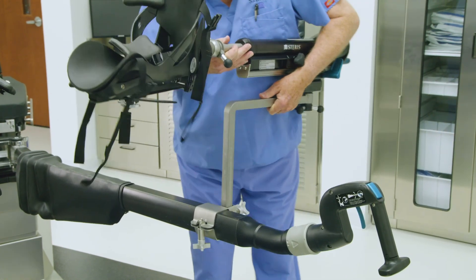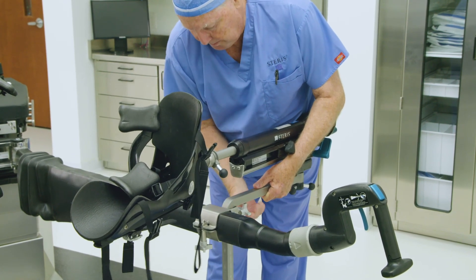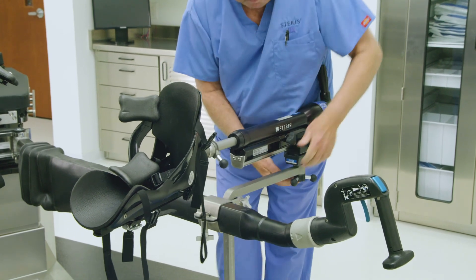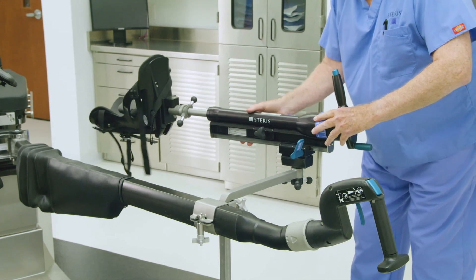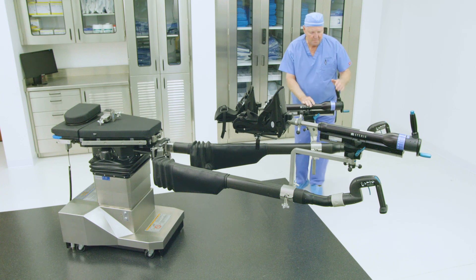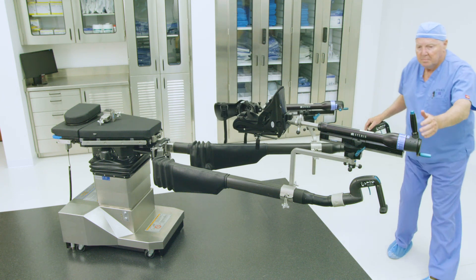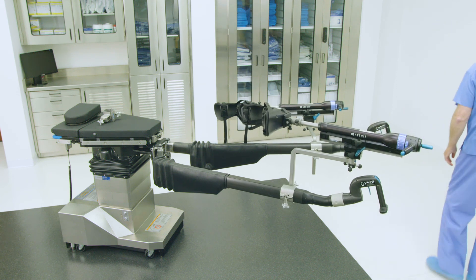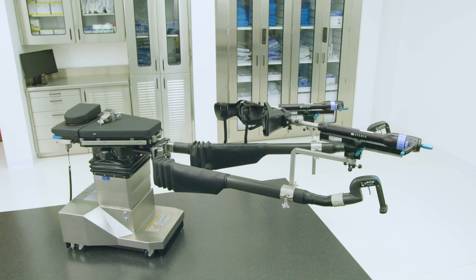Also, set the L-shaped bracket to a low height position to accommodate the non-operative leg when the patient is in lateral position, then retighten the clamp. Loosen the knob below the gross traction slide and pivot the traction assembly 90 degrees into alignment with the patient's non-operative leg. Finally, using the handles on the fine traction controls, rotate both of the traction boots on the operative and non-operative abductor spars by 90 degrees to allow the patient's feet to be secured in appropriate lateral alignment.